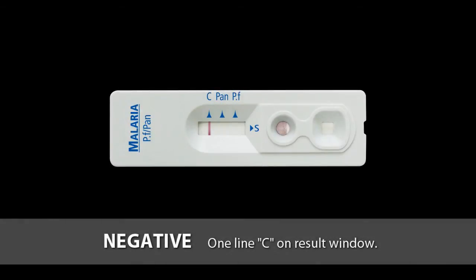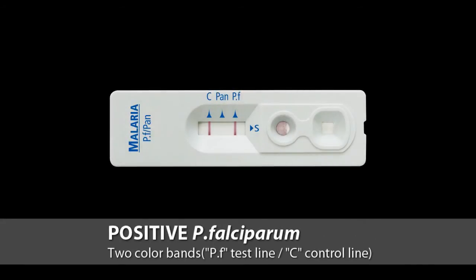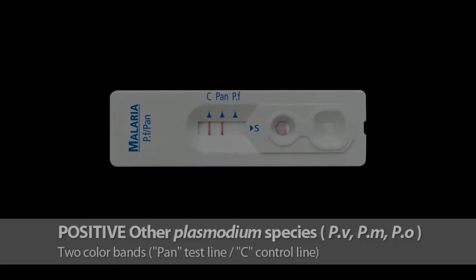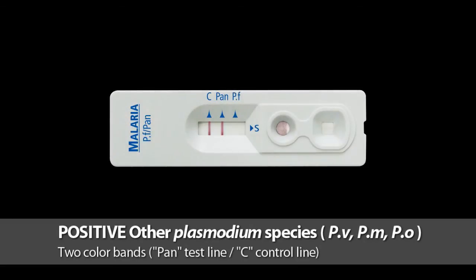Only one line at C on the result window means negative. 2 color bands on Pf and C line mean Plasmodium falciparum positive. 3 color bands on Pf, Pan and C line also mean Plasmodium falciparum positive. 2 color bands on Pan and C line mean other Plasmodium species such as vivax, malariae, or ovale positive.